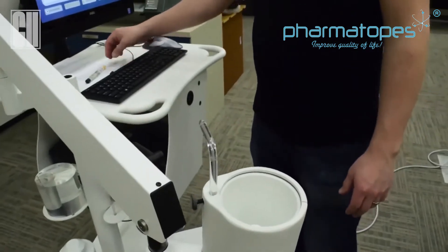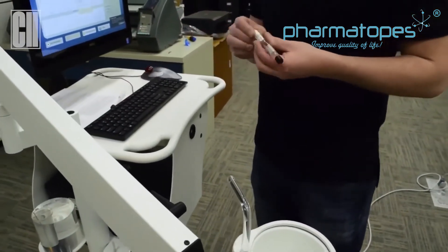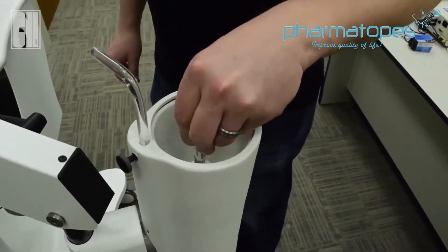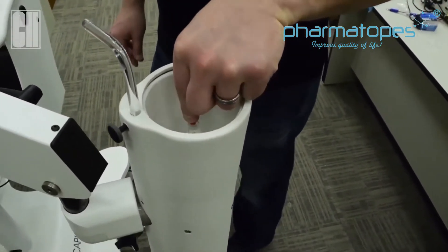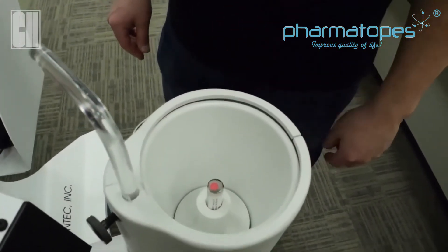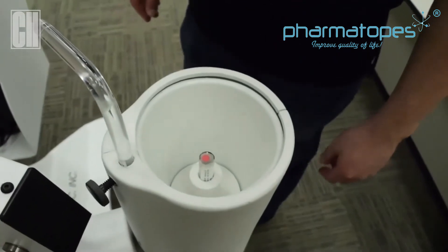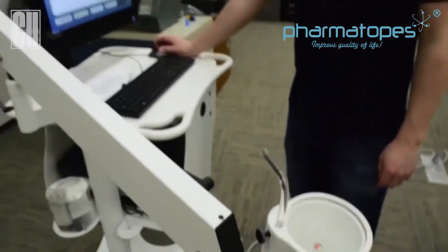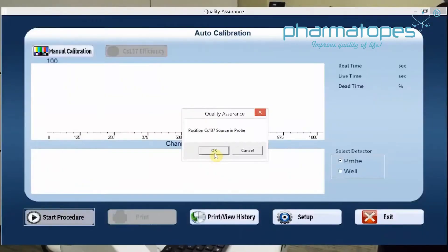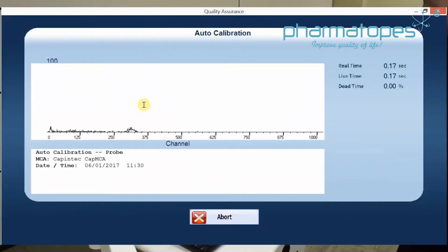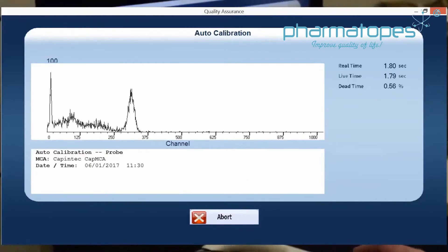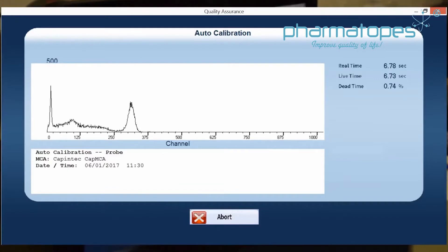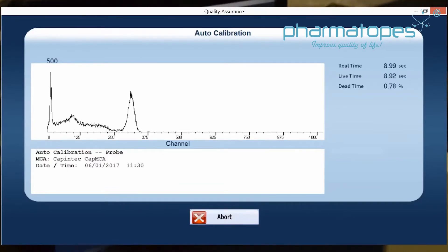Once you have that lined up, grab your cesium source with the black tip down, position it into the center, and make sure that tip is touching the detector down into the probe. Once that's in position, you can click OK to calibrate, and you will see your spectrums — it will make adjustments to the spectrum until it's successfully calibrated.